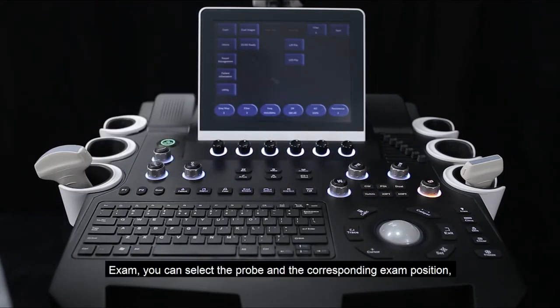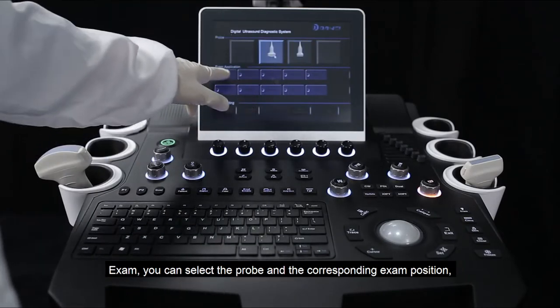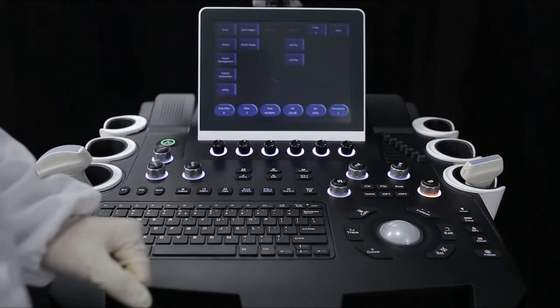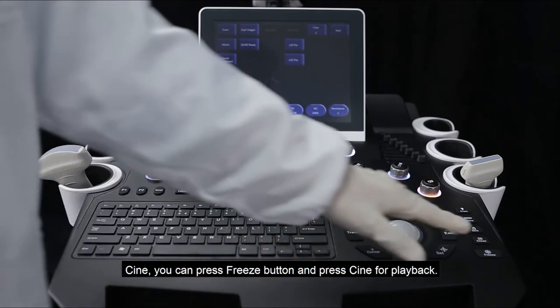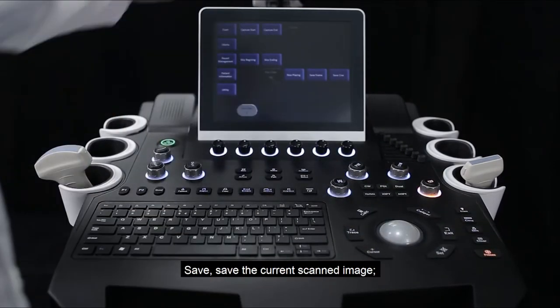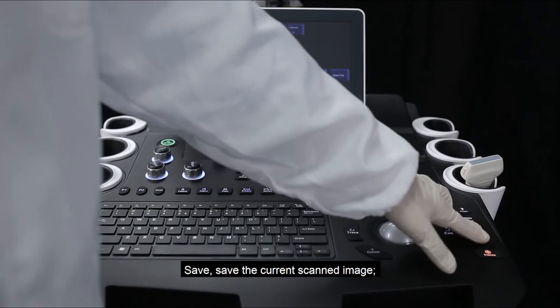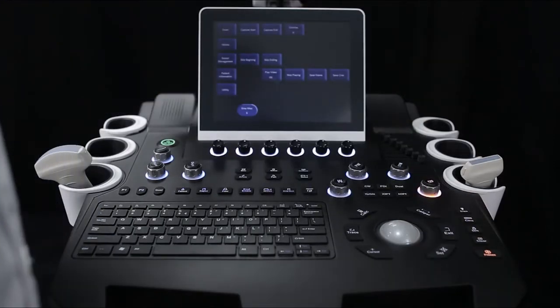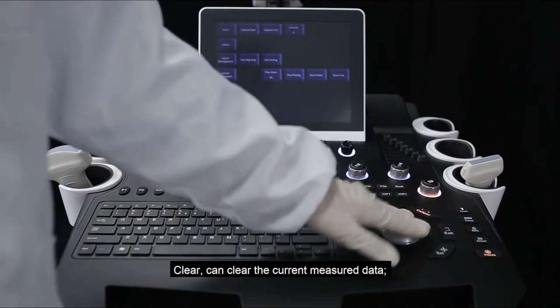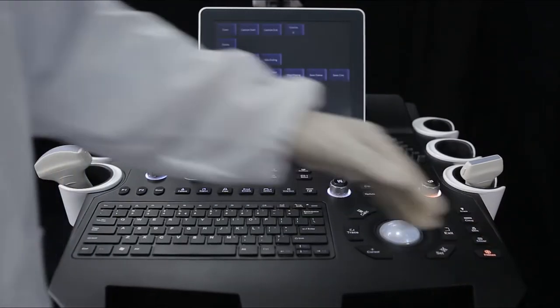Exam allows you to select the probe and the corresponding exam position, and also on the touch screen for the corresponding selection. Cine: press the freeze button then press Cine for playback. Save stores the current scanned image. Clear can clear the current measured data.